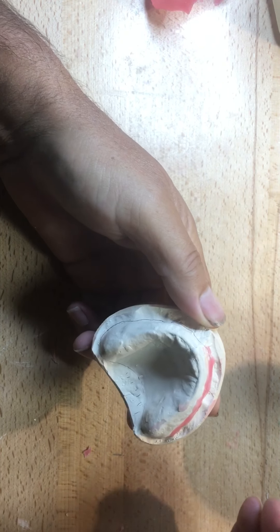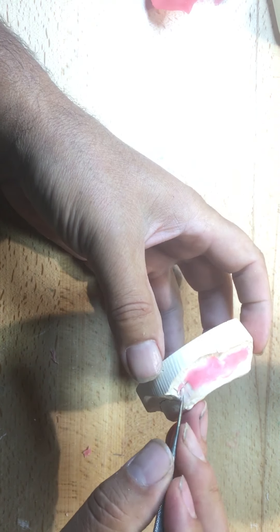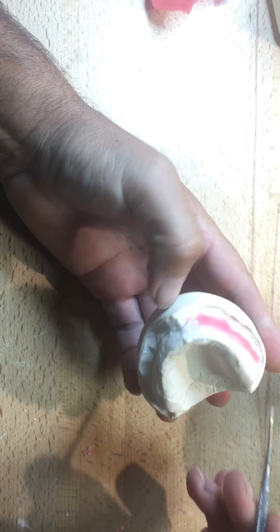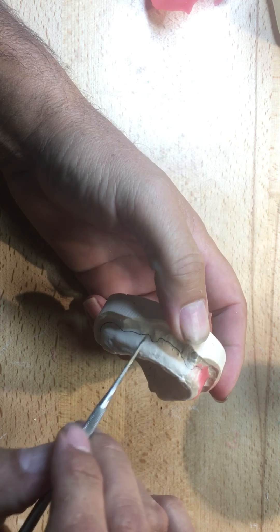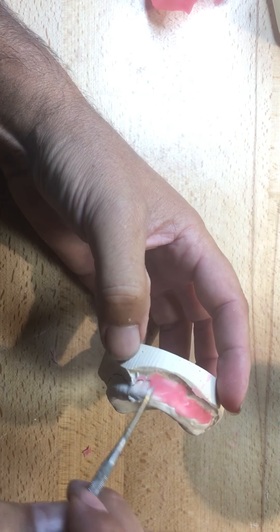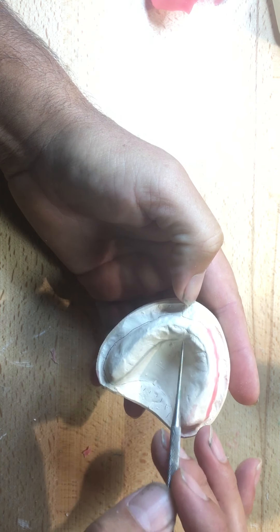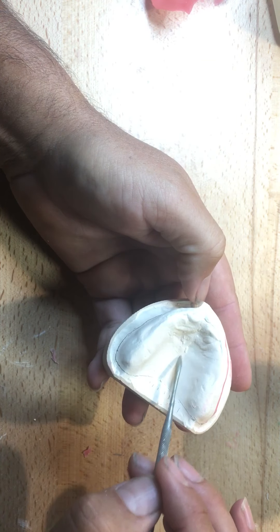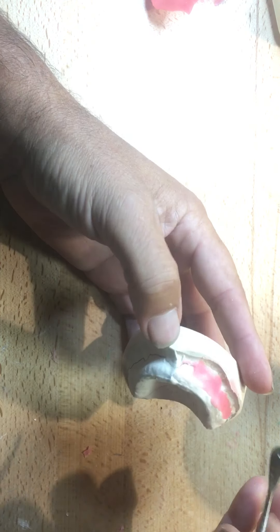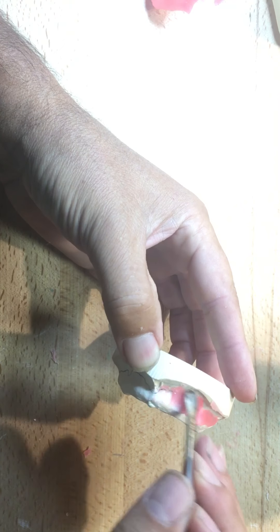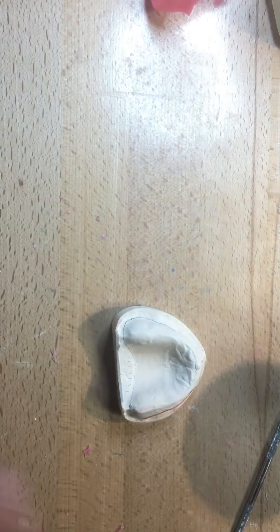So what I'm going to do here is I'm going to turn it upside down and I'll light cure for another one to two minutes. It was a little bit, now here's my free flowing wax on this side of my model. And I'll boil that off before we hand that in. But I mean, even as an alginate impression, I see that many dentists are moving forward and not even as accurate as this one. I mean, this one has all the anatomy. I mean, I can see the soft palate. I see all the frenum attachments, even though they're blown open with the alginate and overextended, but I see everything here. Hamular notch, incisive papilla, rugae, you know, there's no void in the mid palatine suture, maybe a little void up here. That was a bubble.